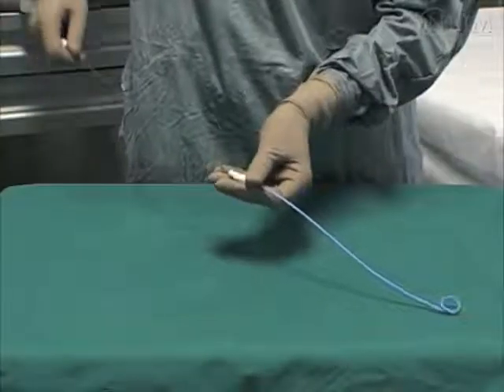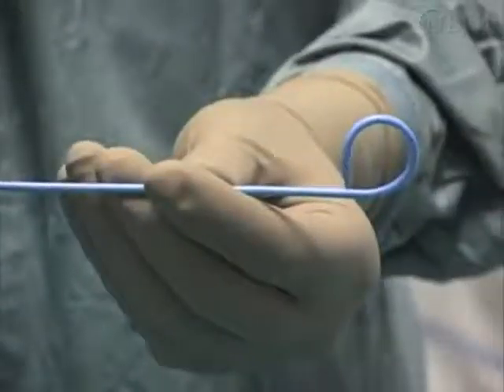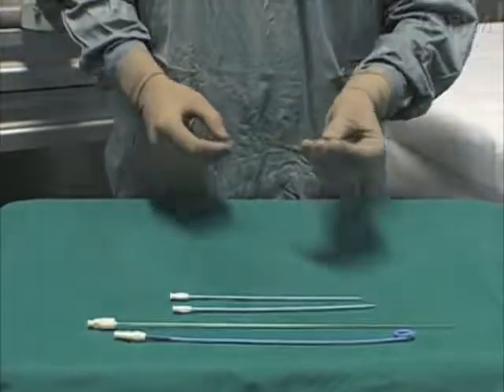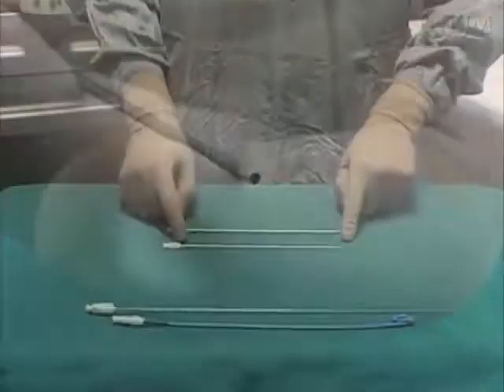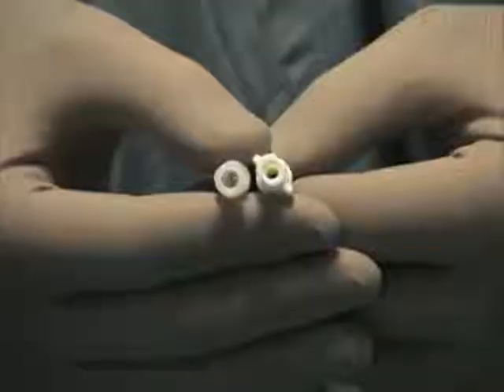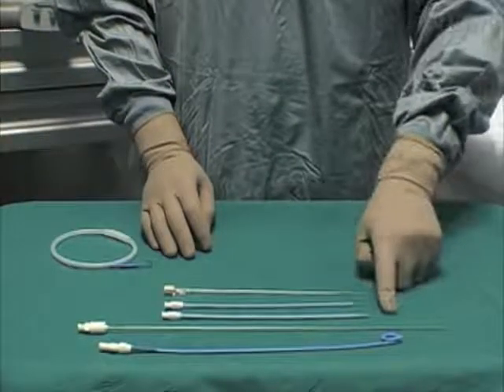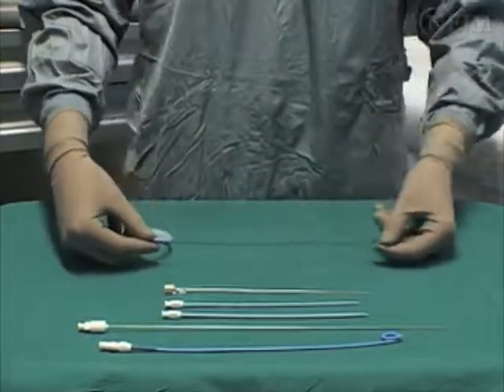The stiffening cannula will facilitate the straightening of the curled tip of the pigtail catheter during insertion. The introducing needle has a pointed stylet that, when removed, exposes a blunt tip. The dilators are to facilitate gentle dilation of the tissues of the chest wall. The catheter, stiffening cannula, needle, and dilators are hollow, which allows them to slide over a guide wire, according to a Seldinger technique.